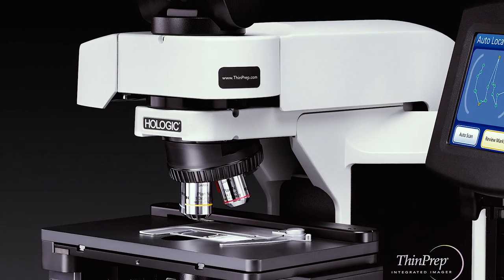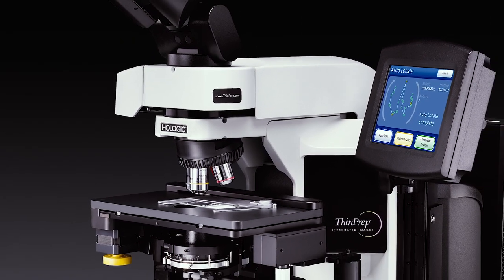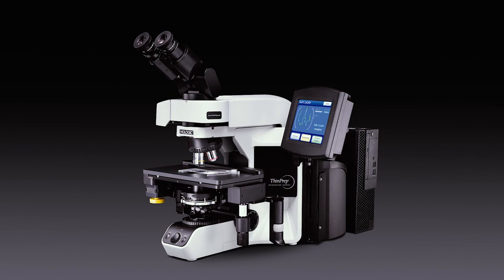Hologic is pleased to introduce the ThinPrep Integrated Imager, the latest FDA-approved addition to the Hologic family of comprehensive cervical health screening solutions.